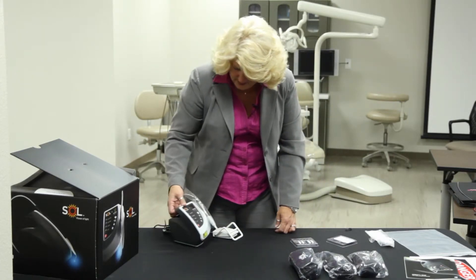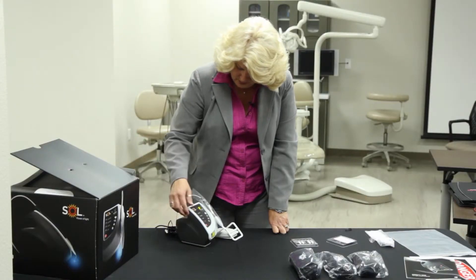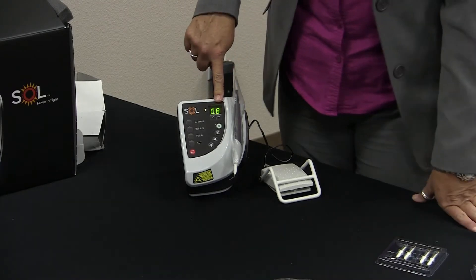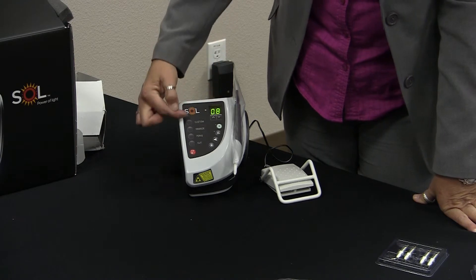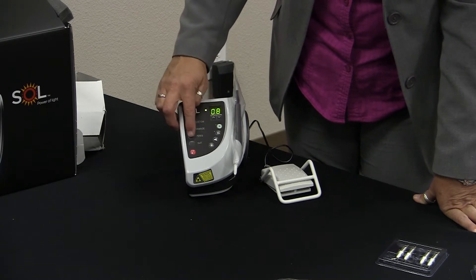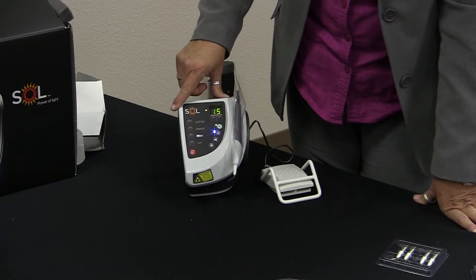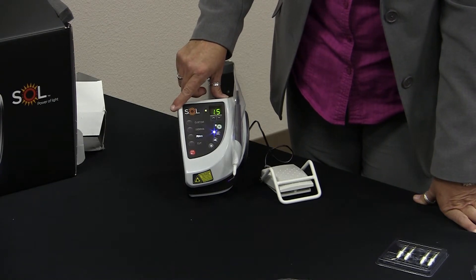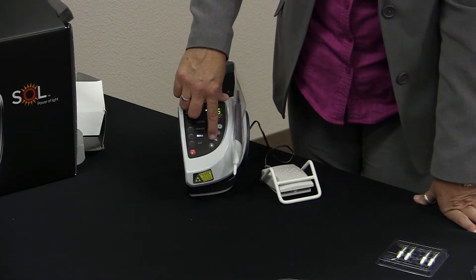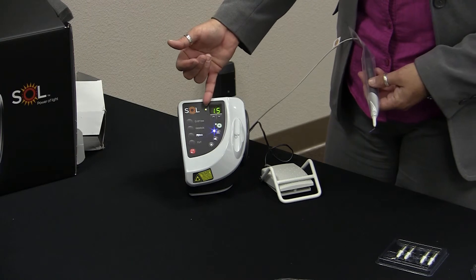So let's look at the face of this. It tells you that it is charging when it's flashing green. So we have the key turned on, and it reads that we're at 0.8 settings. Now if you want to change any of these, you have Custom, Debride, Perio, and Cut. If you do select any of these — like for example Perio — you would have to hit the green button each time, and it will give you a little activation letting you know that's been selected and that we're in Pulsed mode. This also controls the volume — you can either turn it on or off — and this controls the light. There are five settings for the light.